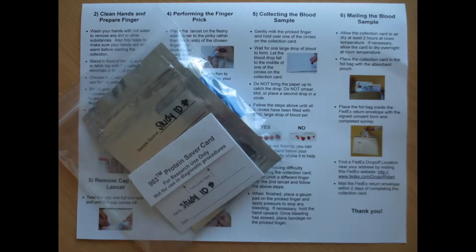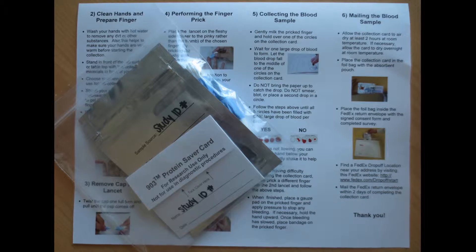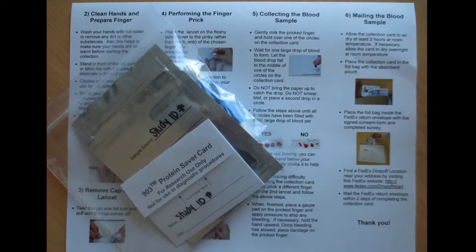Collecting the blood spot sample is a fairly easy process and should only take you a few minutes. Before collecting your blood sample, please make sure to read the written instructions that were included in your packet.